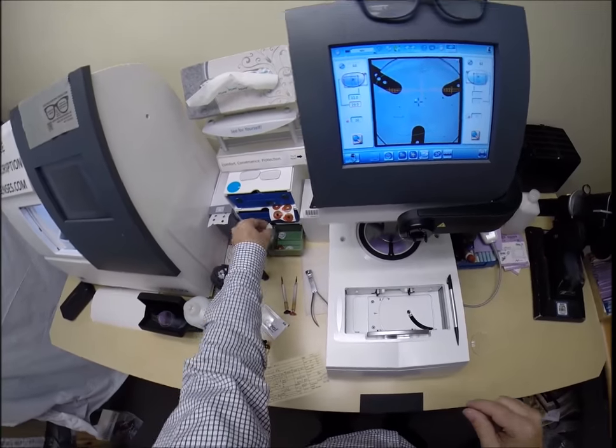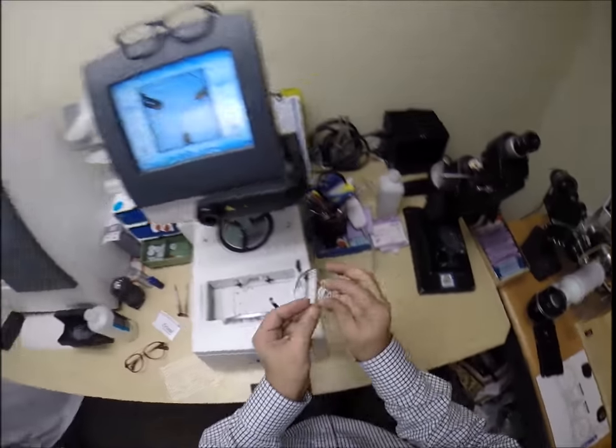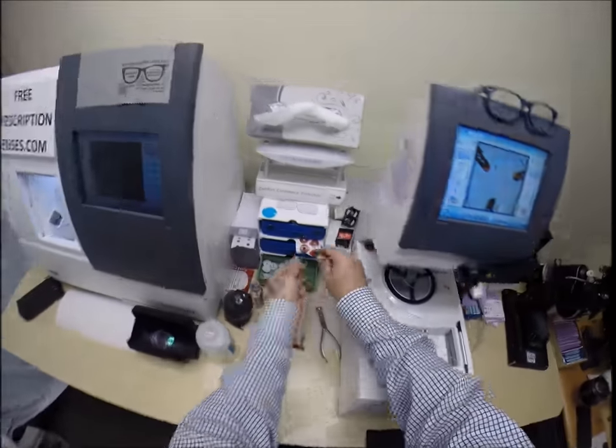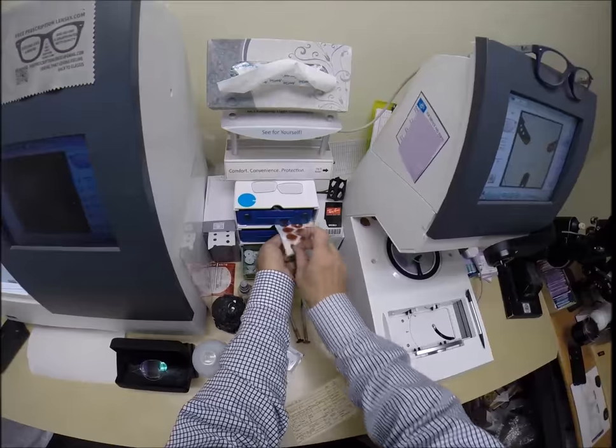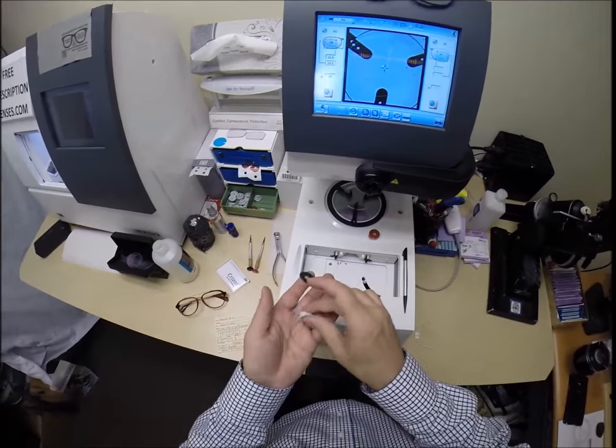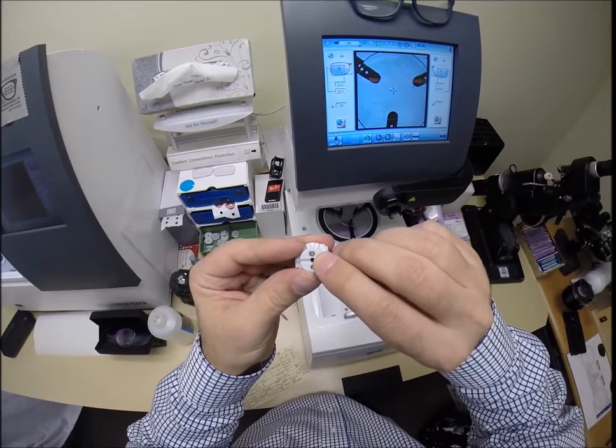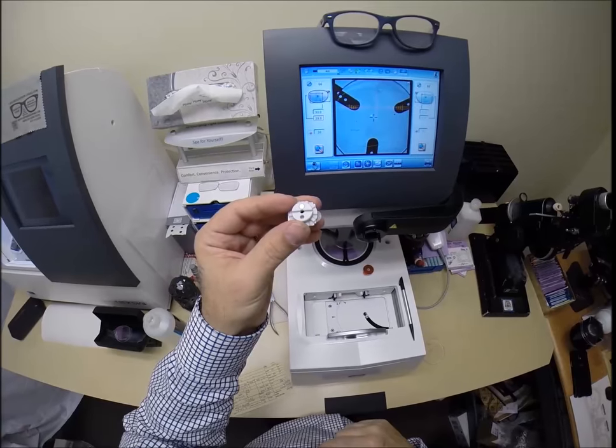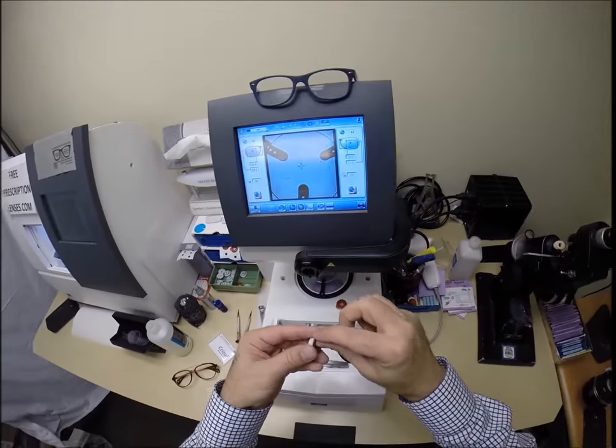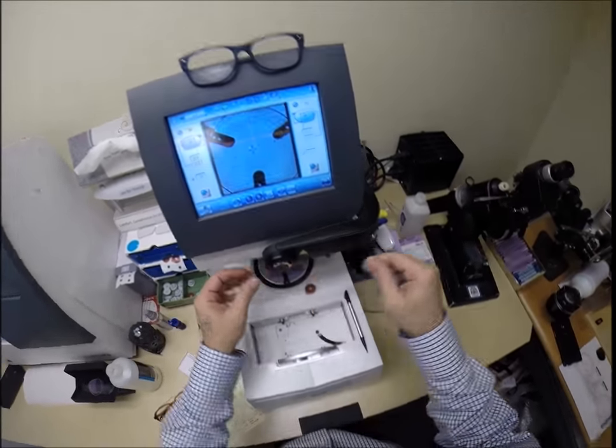I need two blocks or as I like to call them Jenny from the block. I need to attach this to your lens while it is cutting so I need to use a double-sided adhesive sticker. The black side is the sticky side. I'm going to stick that onto the first block, place it onto the platform. Do the same thing for the second block. Now on the back is a little silver button that is a magnet. It's going to attach itself to something magnetical there in the arm.